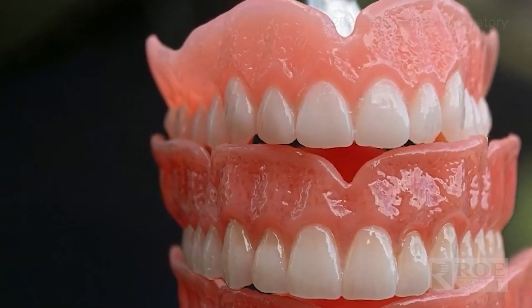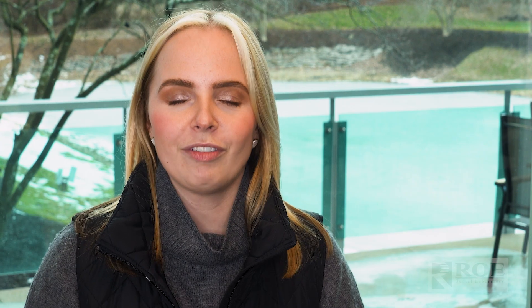We make those changes for you and your patient to improve the case, then reinsert the new denture. One fantastic benefit that comes with our digital dentures is our ability to keep the final denture design. Meaning, if your patient throws their denture out, their dog gets a hold of it, or any of the crazy things that seem to happen to dentures, you can just call Roe and we simply reprint another one. No new scans, no new models, no new records — just call Roe to reorder.